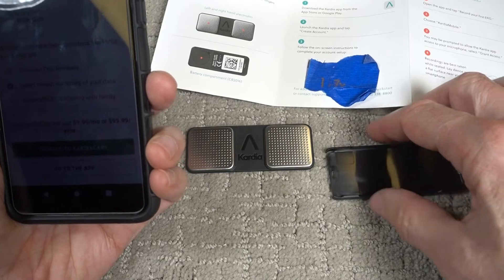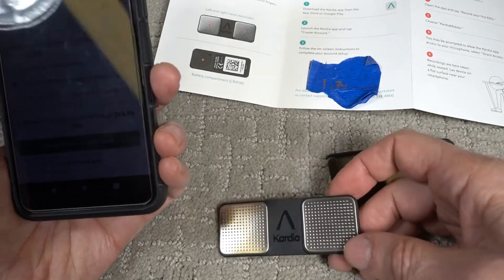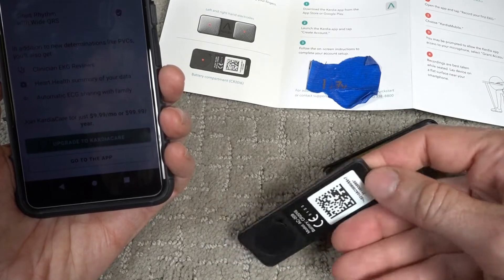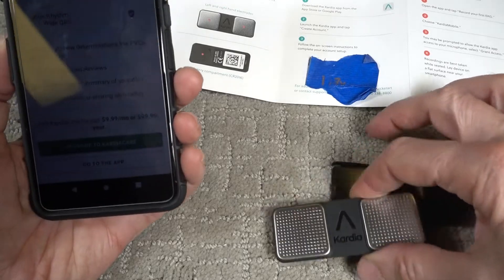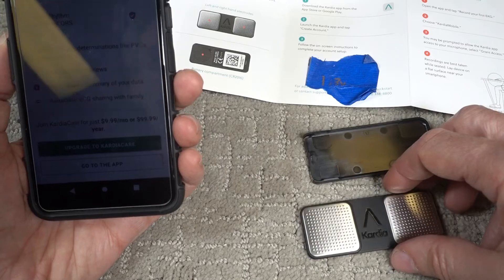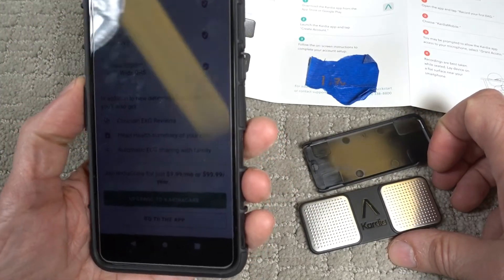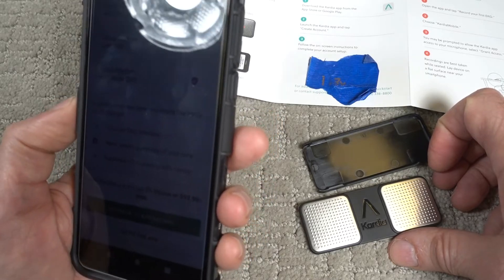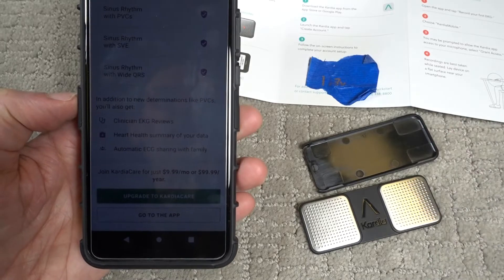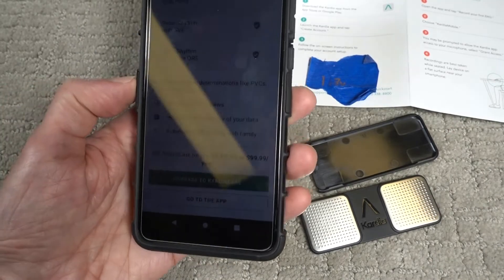You're supposed to keep it with you, and this communicates with your phone. A warning about the phone: I had an older Samsung J3 and it was not compatible with this device. Fortunately, when my cell phone carrier moved up to 5G, they gave me this new phone — a T-Mobile Revel — which should be compatible. So what you have to do is download the Cardia app from the App Store and then launch it.